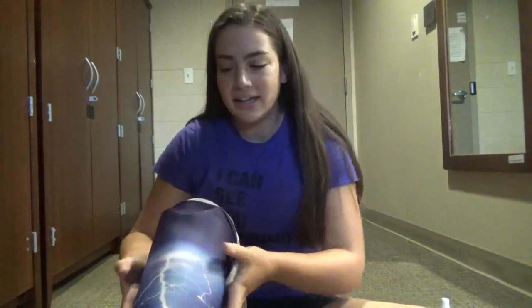Don't get me wrong — some people love how the pin works. For me, I feel like the seal and liner fits a little bit better in my leg; it feels like my prosthetic is actually part of my leg. Whereas the pin lock kind of feels like an extra element — if I were to kick my leg, it would take a half a second afterwards for my leg to follow. And I just didn't like that. Every leg system has its benefits.